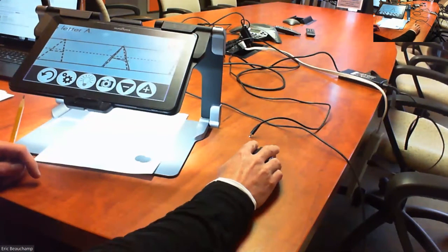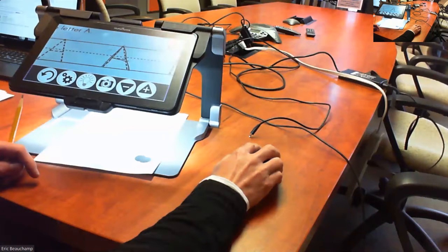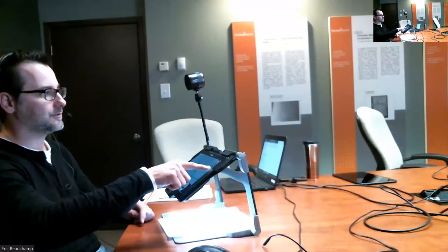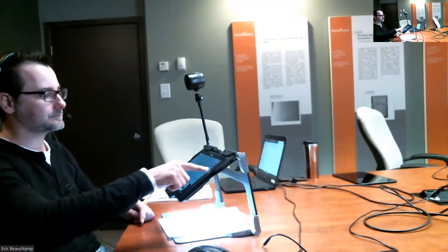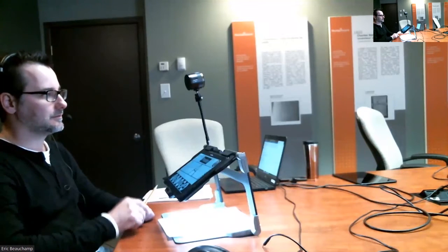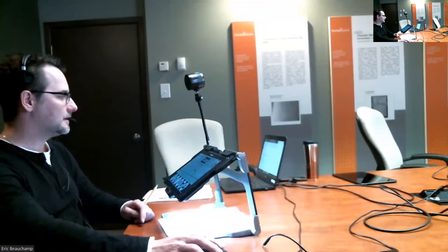Here, maybe I can switch a camera so you can see what my fingers do on the screen here. So just put one finger on the screen and just move down, and it's going to change. And you can loop like that from positive, negative, and into color mode.